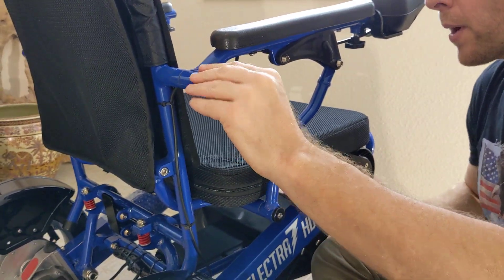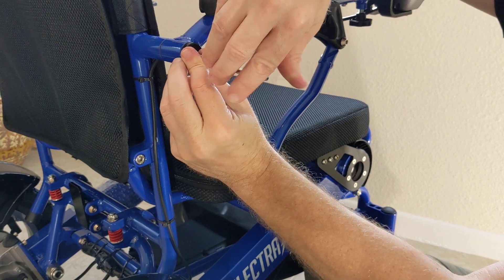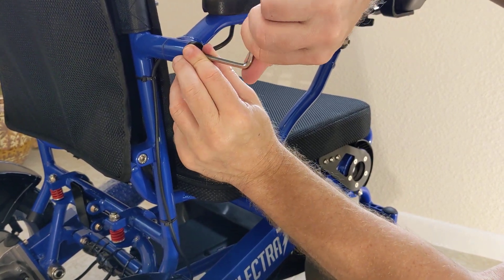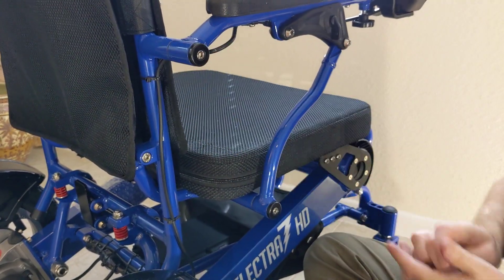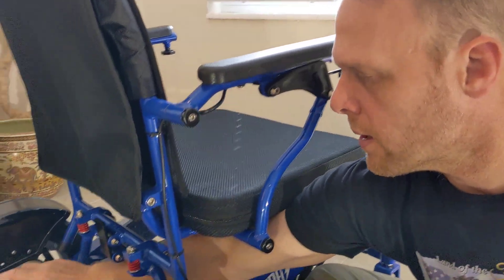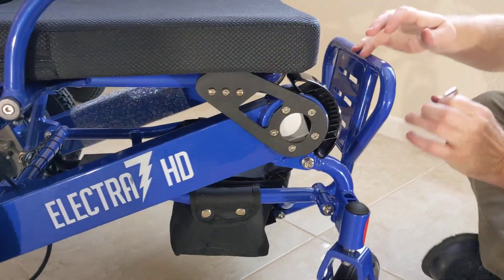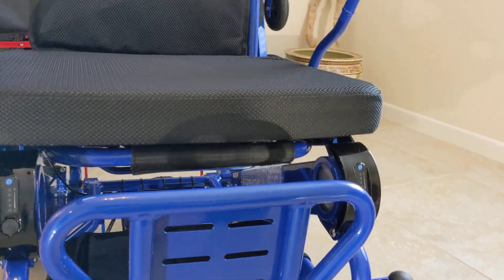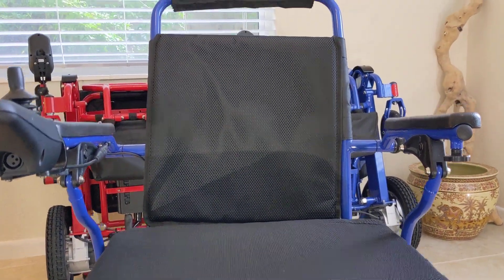Let's get the cap all the way on. Here it is — here it's not quite. You have just a little bit more to go with the actual screw. And there we go. Everything works here, it looks great. We'll just swing this chair around — and it was that easy, that simple to take the armrest spacer kit off of the chair. The chair is restored to the way it came from the factory. That is the Electro 7.